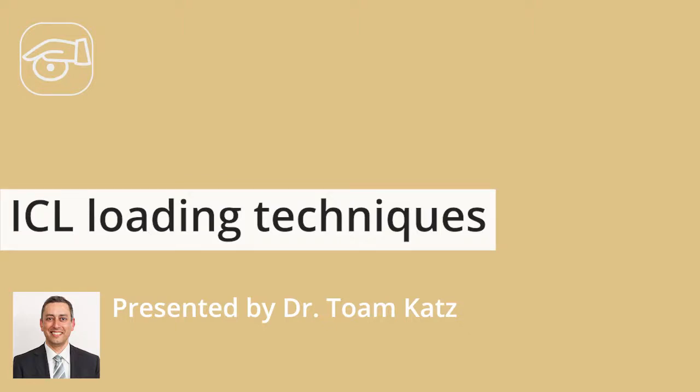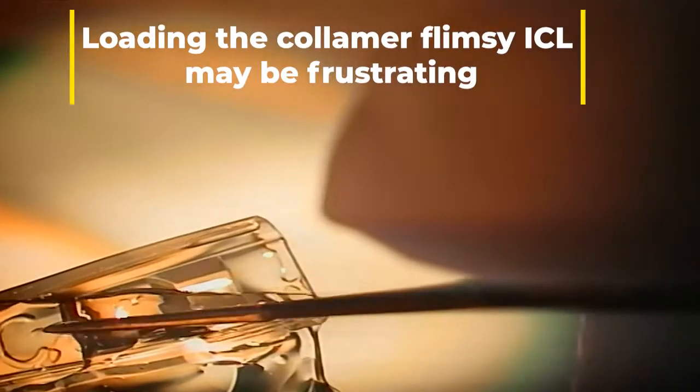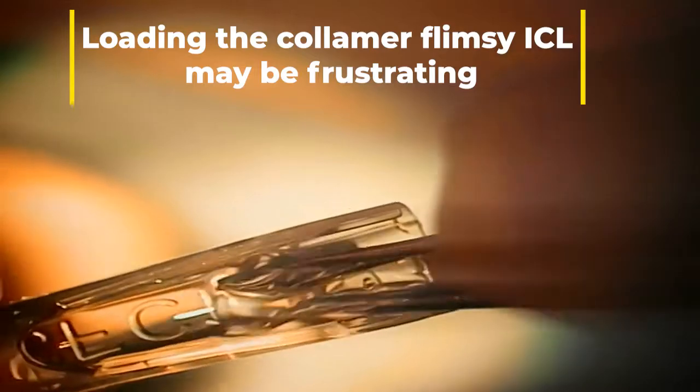Dear colleagues, here is Dr. Tom Katz from Hamburg, Germany, and I would like to share with you some tricks to load the ICL lens in the injector.